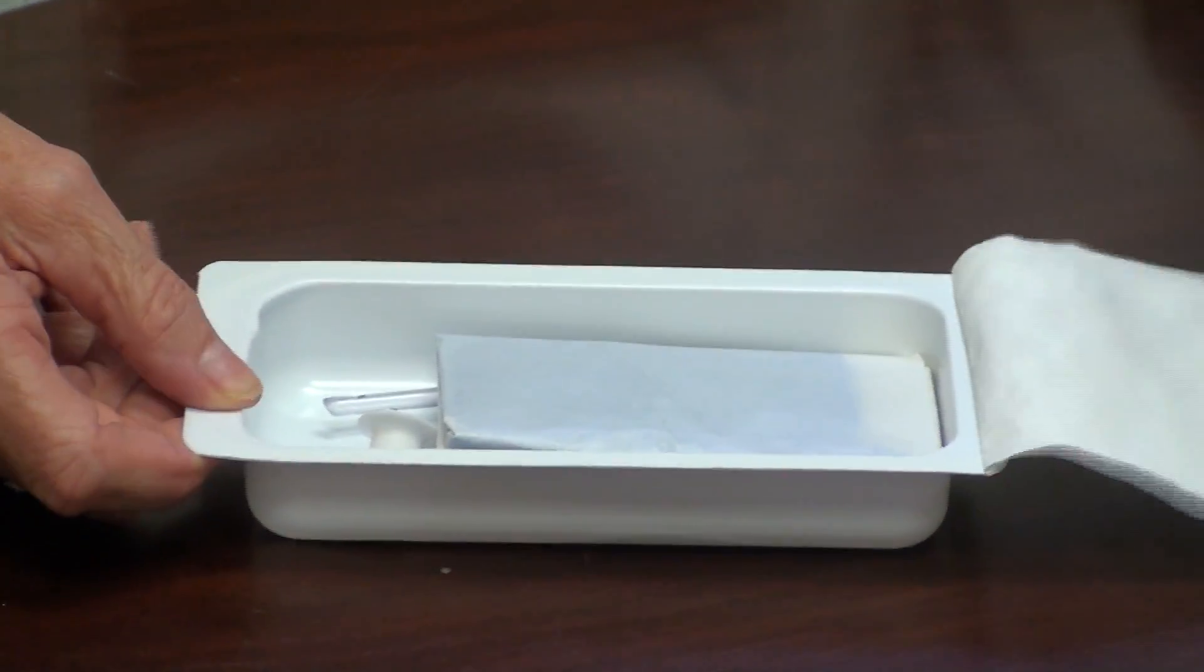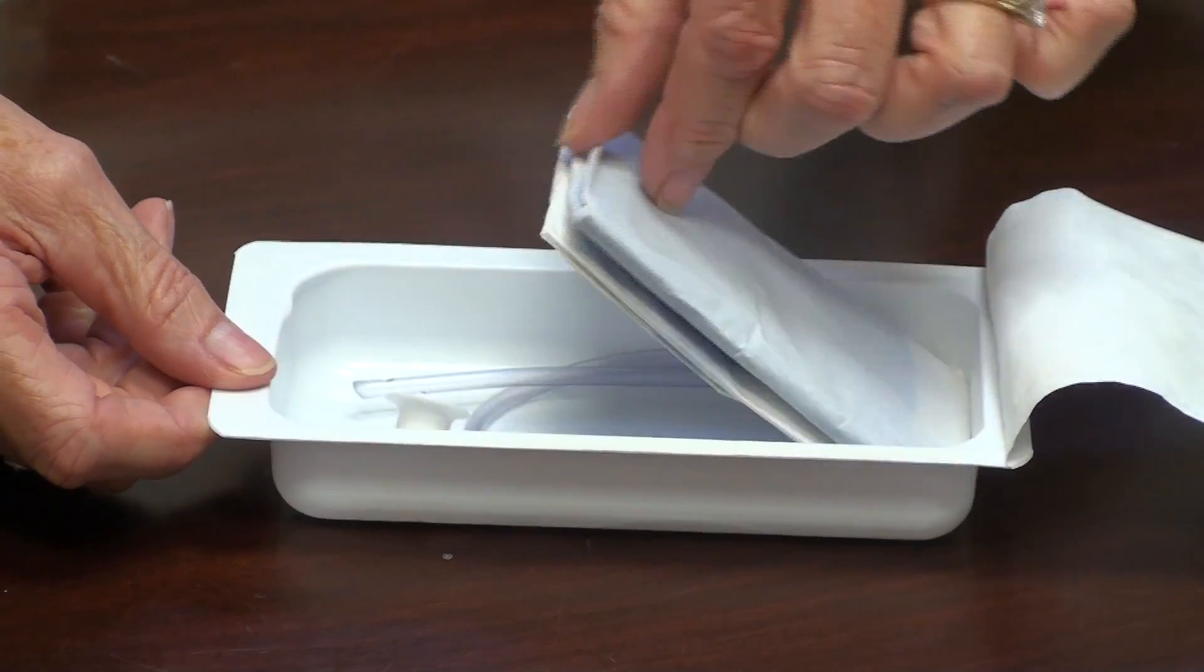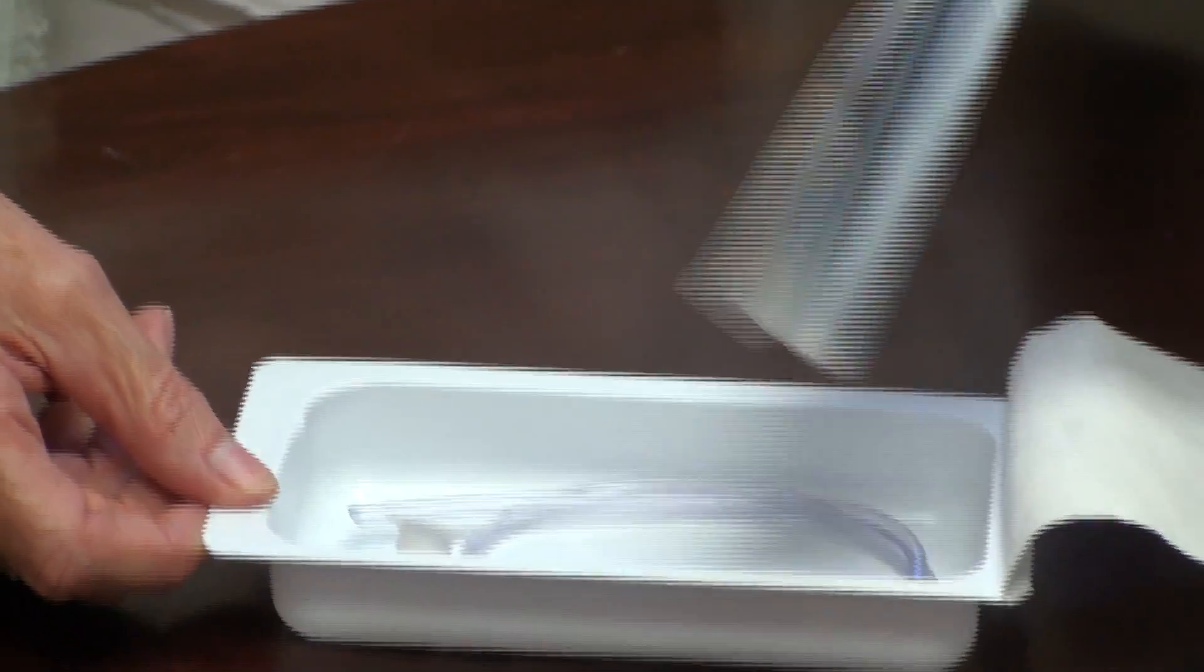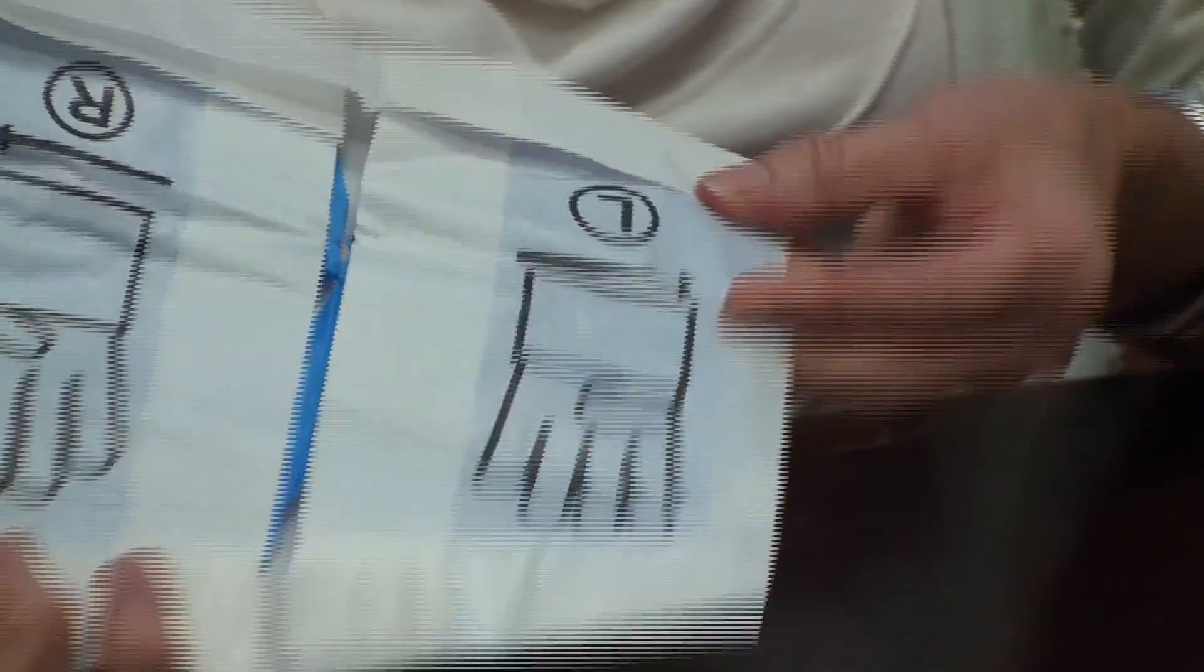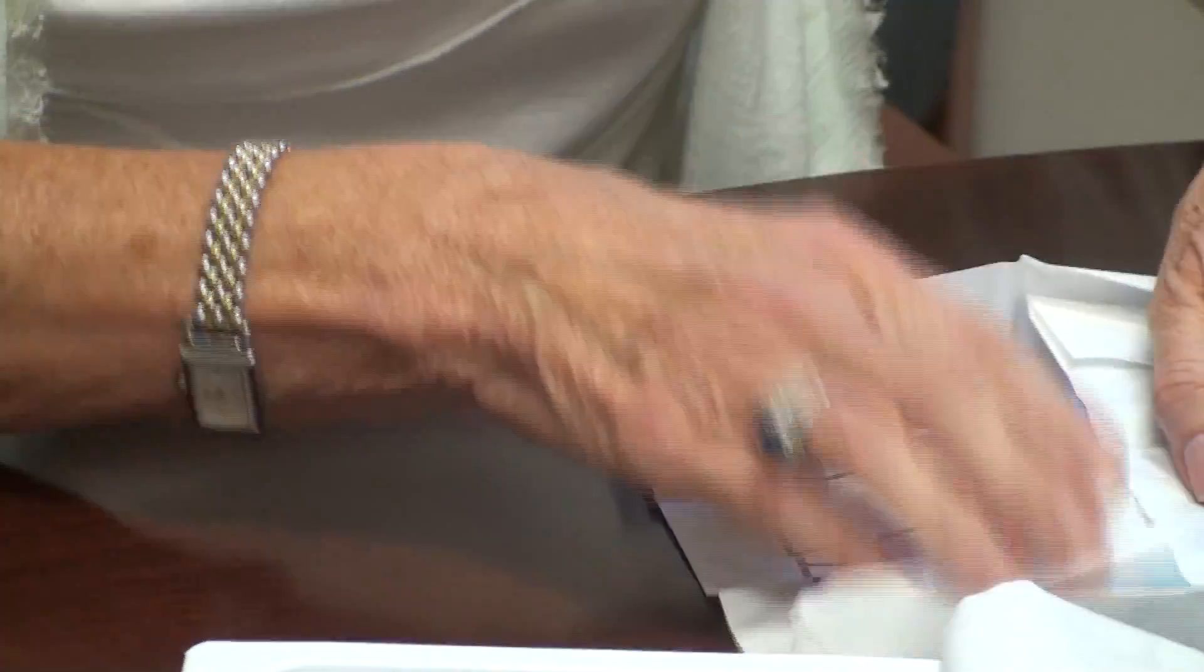All right, you open your kit. You may reach in like this and it has a pair of sterile gloves that you will open and put on before you do your suctioning. And I'm not going to use sterile technique to show you.